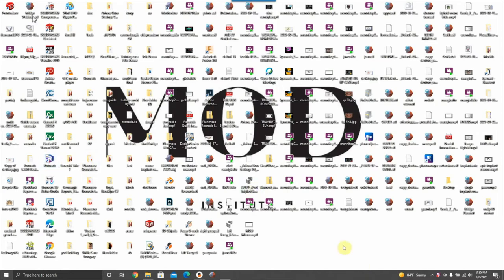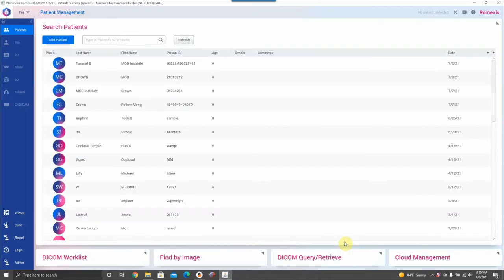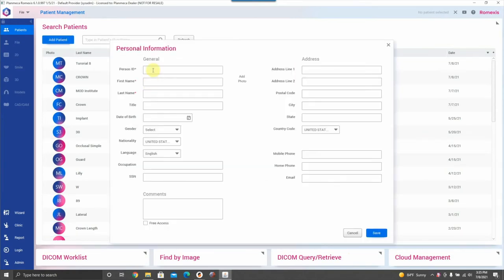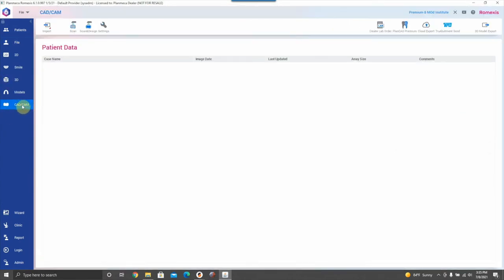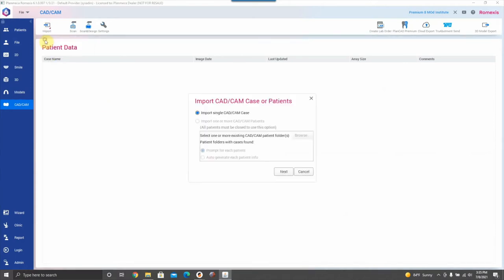Open up Romexis and add a patient — I'll put a random ID and call this Mod Institute Premium, tooth number eight. Once you have the patient data entered, go to your CAD CAM module. It's important to not unzip the file when you download it — keep it in its native zip state — and go to Import CAD CAM Case.